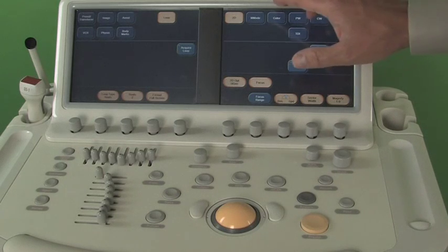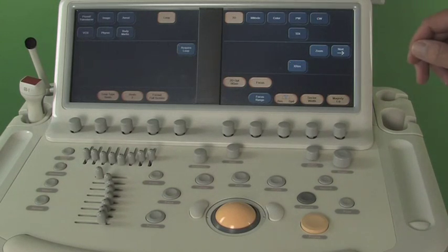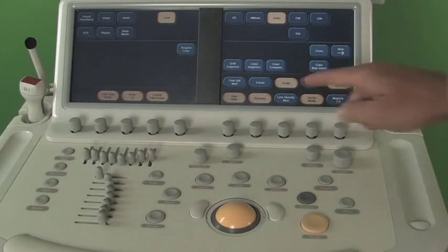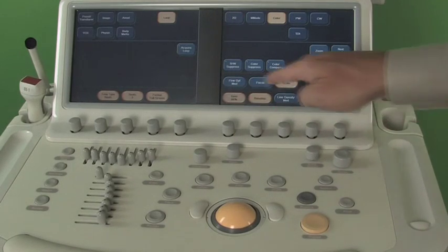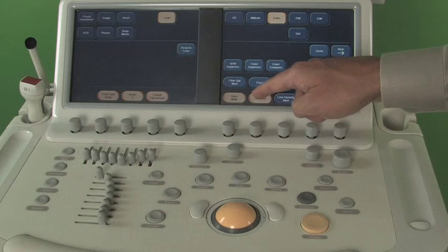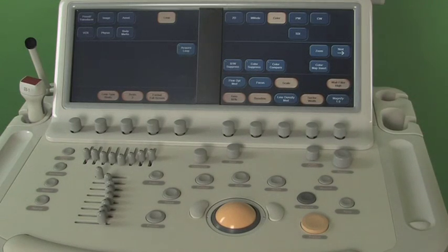And they update with your mode. So when you're in color mode, the soft keys change. So automatically they're set up for scale, baseline, and so forth to manage your color flow study.